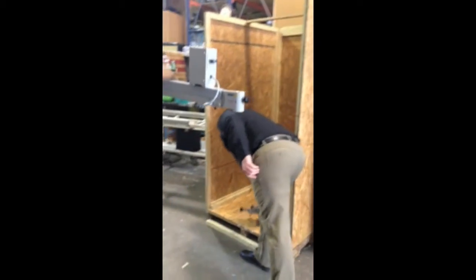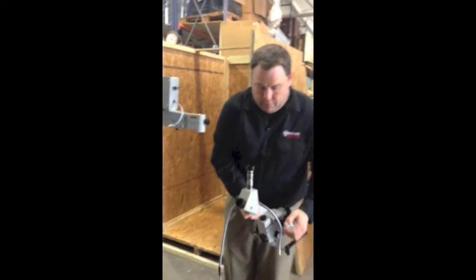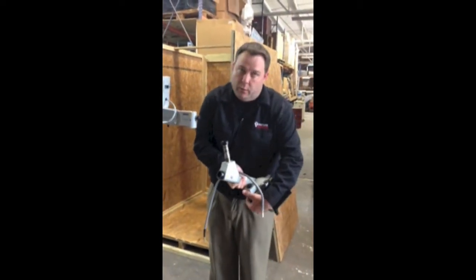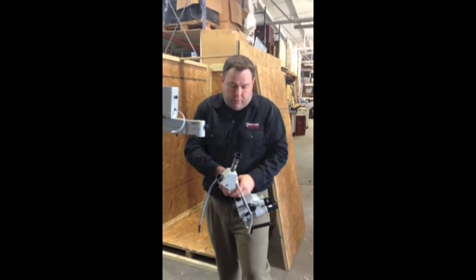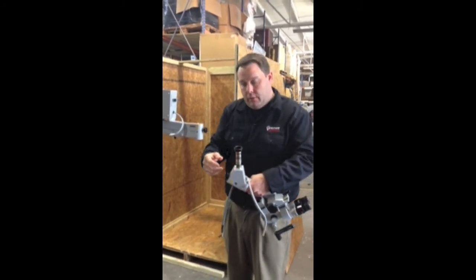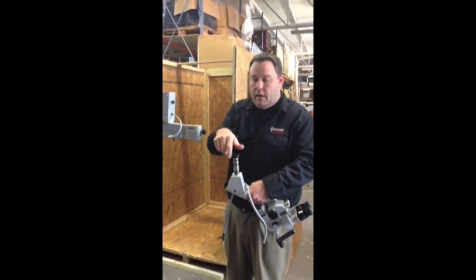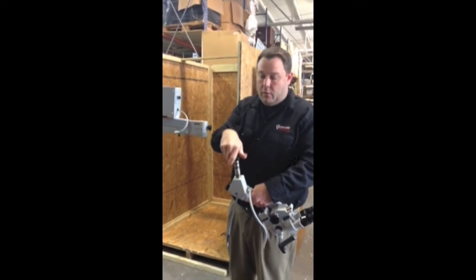Then you're going to take your head — you're going to receive this in a separate box for safety. Be very careful with the head and hold it very securely, because if it falls, we all know how expensive these scopes are. This is a locking cap on the top of the scope head — you need to remove this, so unscrew it counterclockwise.